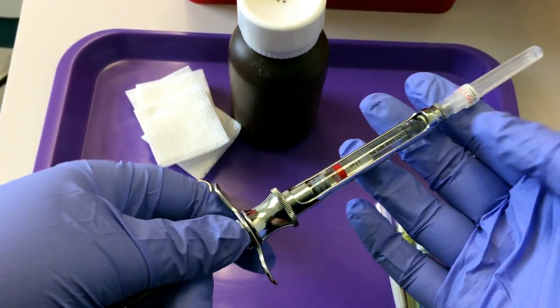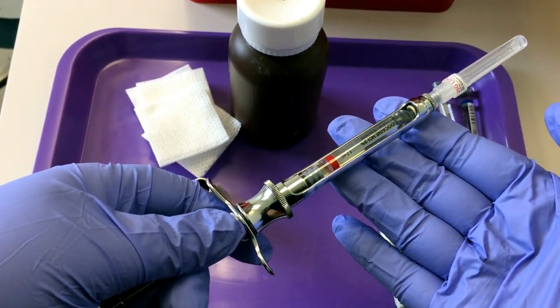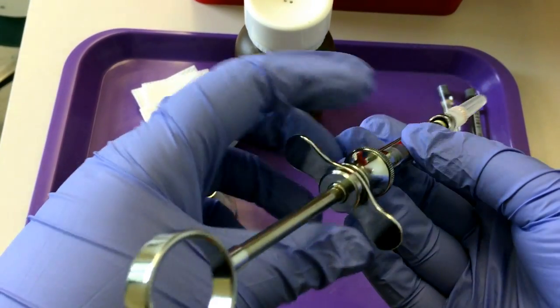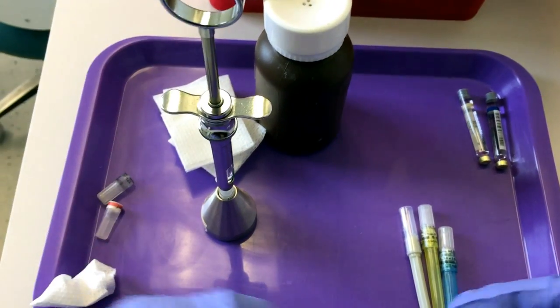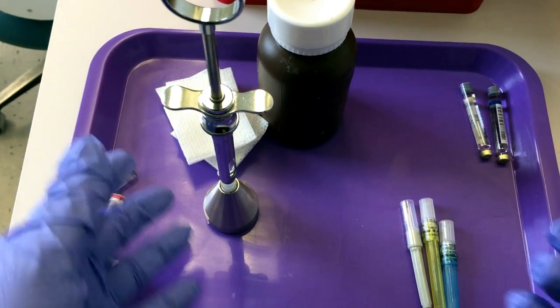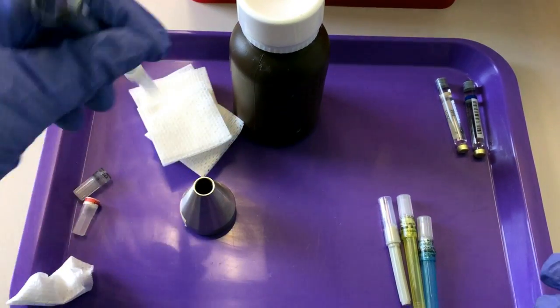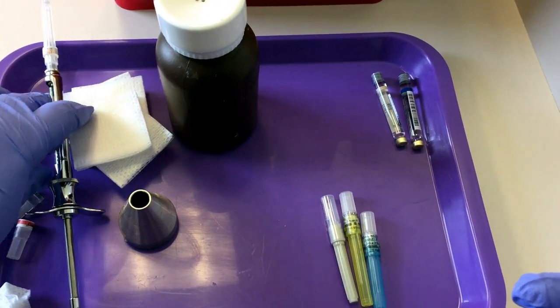Here's your fully assembled anesthetic setup. A lot of offices use a needle holder like this Jenkers. We just set it like this. If you don't have one of these, you can just lay it on the treatment tray. We try to hide this from the patient.